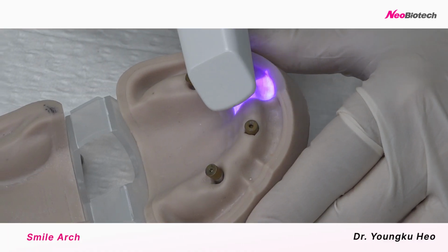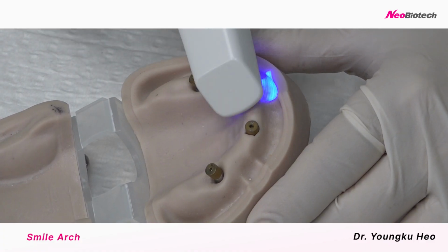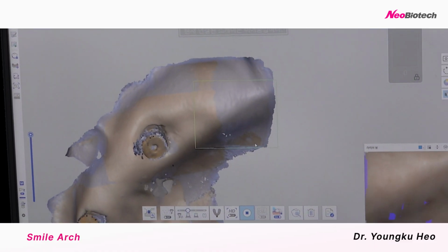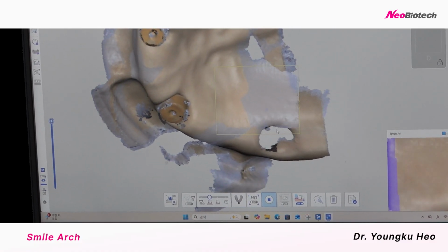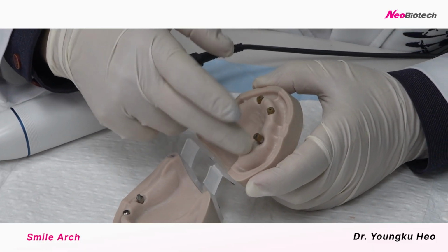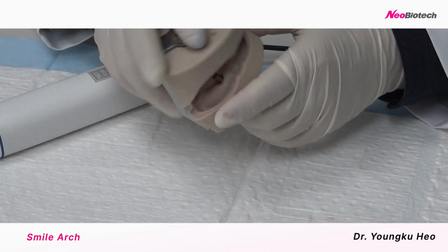All right. We scan this soft tissue. Okay. Go to next. On the soft tissue. So we have 2 data sets, the soft tissue data and implant data. We can match them together. Okay. Thank you.